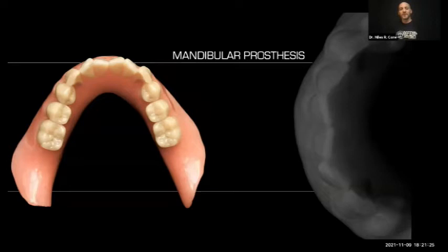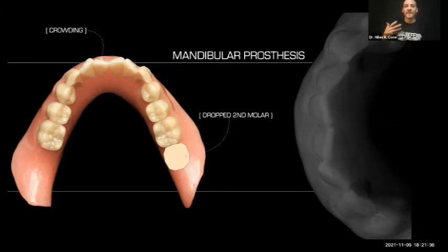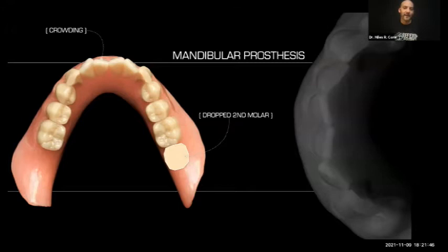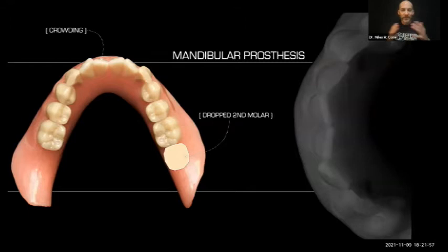On the mandibular prosthesis, I've made the anterior teeth somewhat overlapping with some crowding, because most people have crowding. In the textbooks they mention cross-arch and lingualized occlusion — I don't do any of that. I make all of my dentures canine guided. The literature supports that canine-guided dentures look better, function better, and are easier to set. Much of what we learned in dental school about lingualized occlusion and zero-degree teeth — a lot of it just doesn't add up when you really scratch beneath the surface.